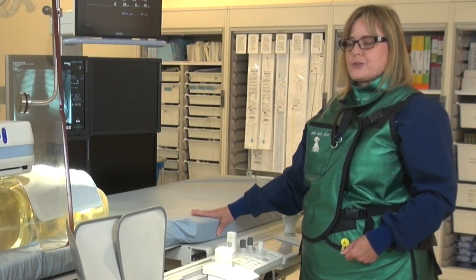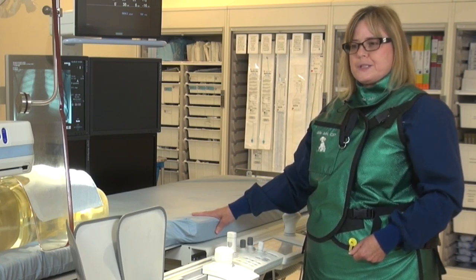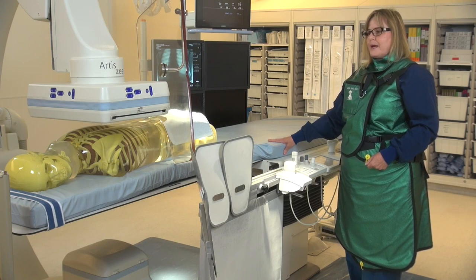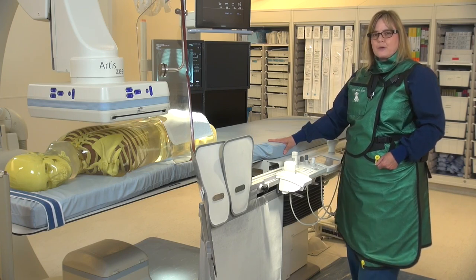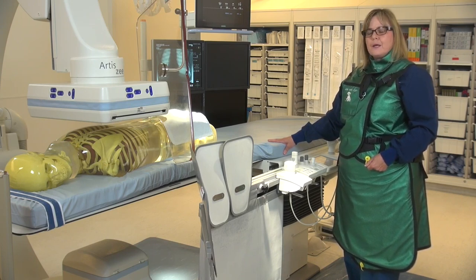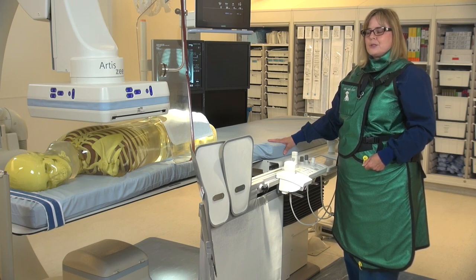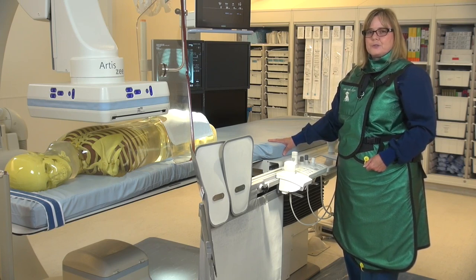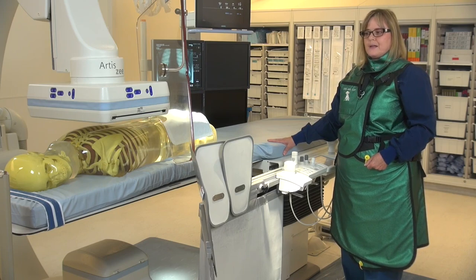Nowadays with fluoroscopy units, we can use the store fluoro mode to save images we want to record instead of going into acquisition. Most units — I know on the Siemens units — you can actually save a thousand frames just as you would for an acquisition, but without using the acquisition mode. From a fluoro technique in the cath lab, we're looking at a technique of about 100–125 kV with about 100 MA. When we move into acquisition mode, we'll stay at about 100–125 kV, but our MA shoots up to about 800–1000. That's a huge difference in technique and of course a lot more dose.